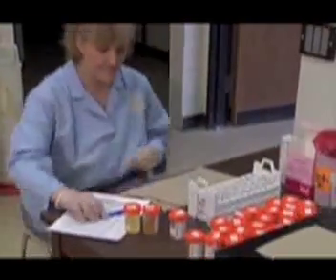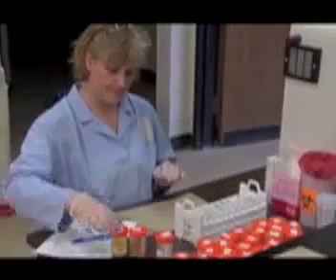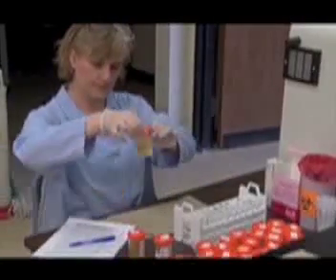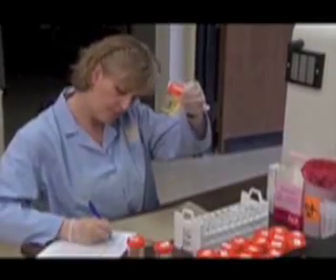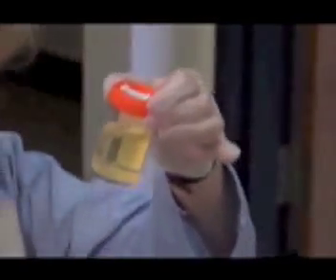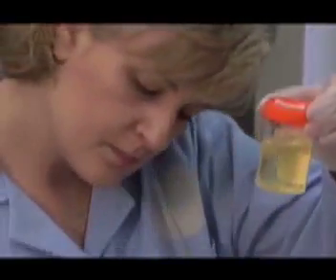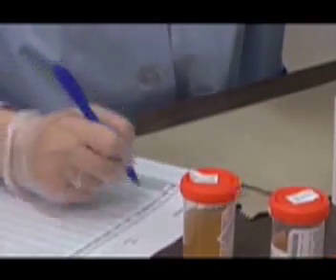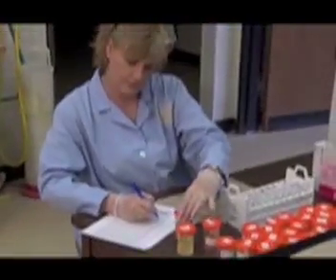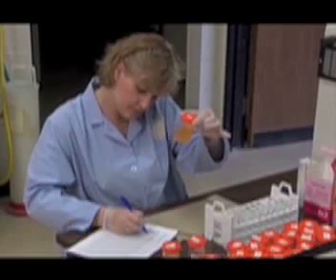The first task of the technologist is to record some visual observations on patient samples. For example, the color of the urine can often change from yellow to brown to red due to the presence of hemoglobin, myoglobin, porphyrins, or other substances. Rarely, it may appear green or blue due to bile, or even black or bright orange if the patient is taking certain medications.